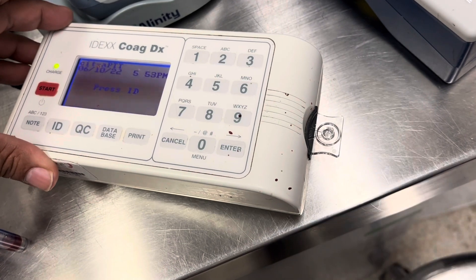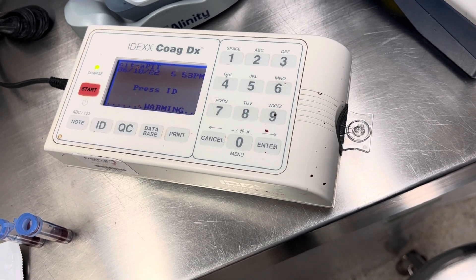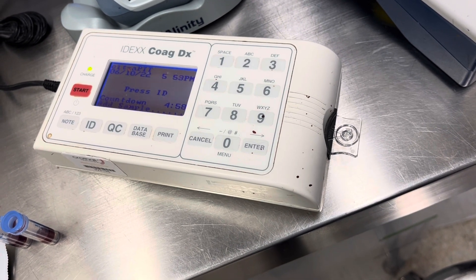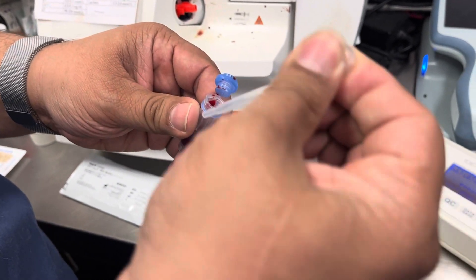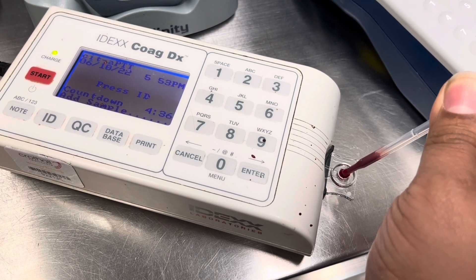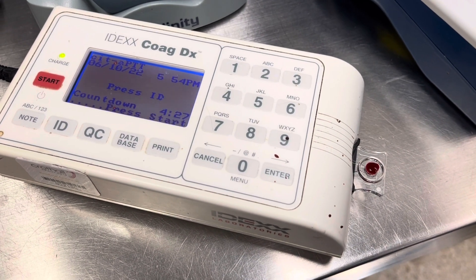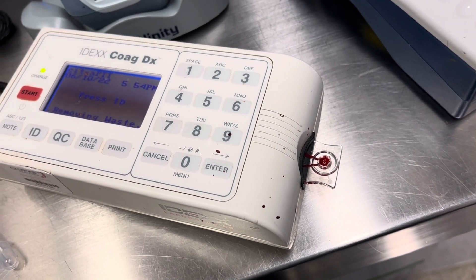First we load the cartridge into the machine. There is a small process of warming up. After about 10 to 20 seconds, it is ready to be filled with the blood. When the warming-up process is over, we take the sodium citrate vial and using a tiny filler, we take a small amount of blood and load two or three drops into the circular depression so as to create a convex surface, and press the start button. You can clearly appreciate the convex drop. When you press the start button, the machine sucks in the blood and then we just have to wait for the result.